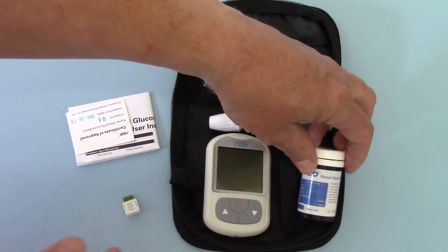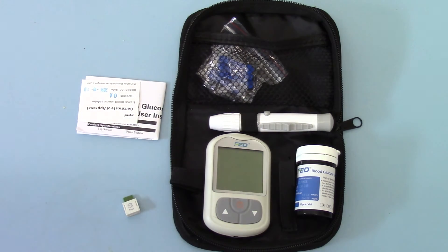So that is the entire package contents that comes with the meter. It's packed with 10 test strips, 10 lancets, the Auto Lancer, battery, and the code chip. There's everything in the starter pack that's required to get you testing and doing 10 blood glucose tests.